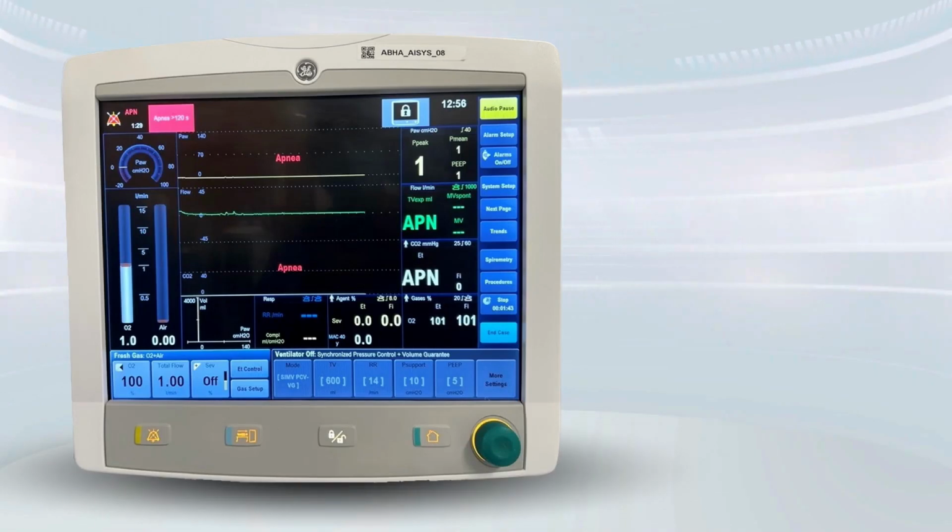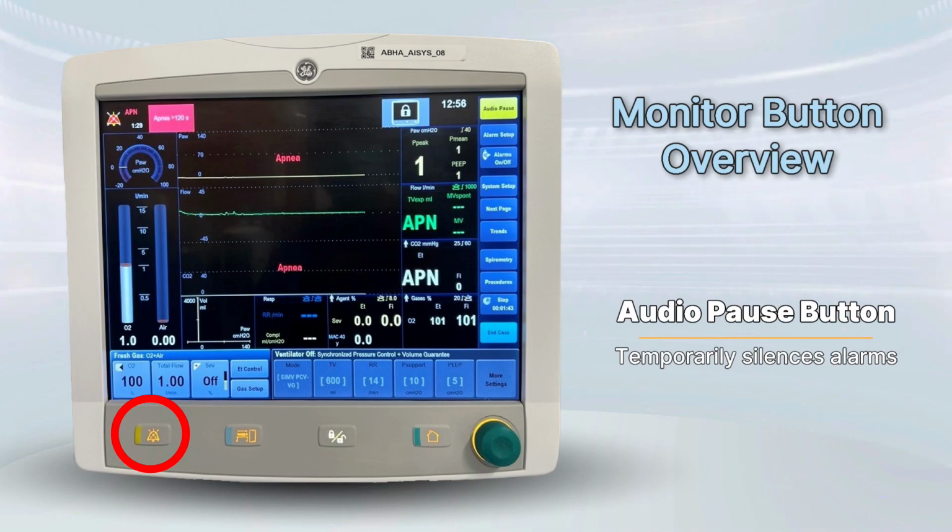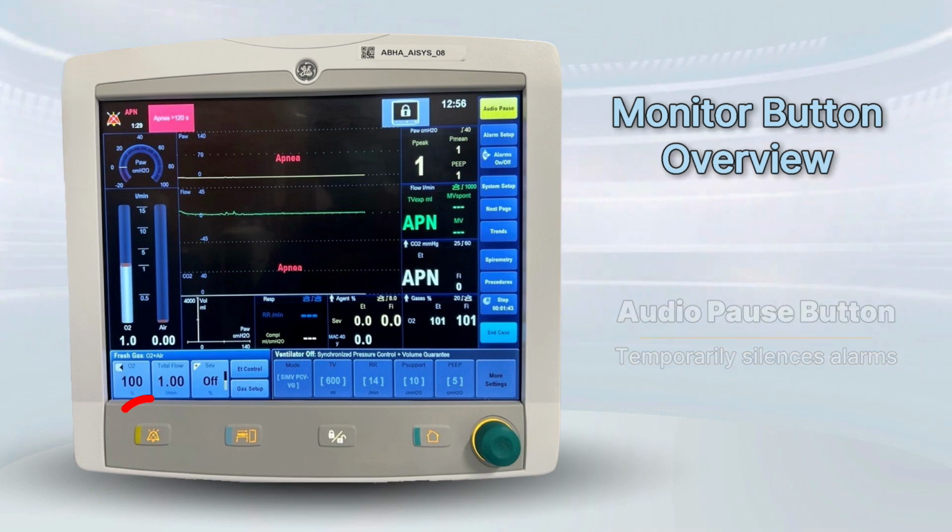Let's now explore the physical switches located on the user interface monitor. Audio pause button. Temporarily silences alarms. Hold for 2 seconds to cancel the pause.